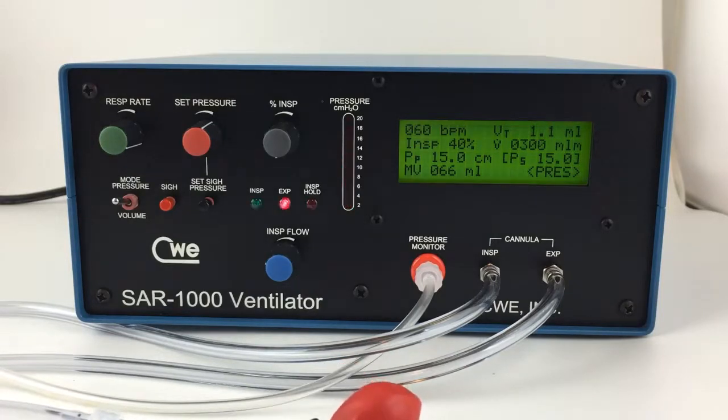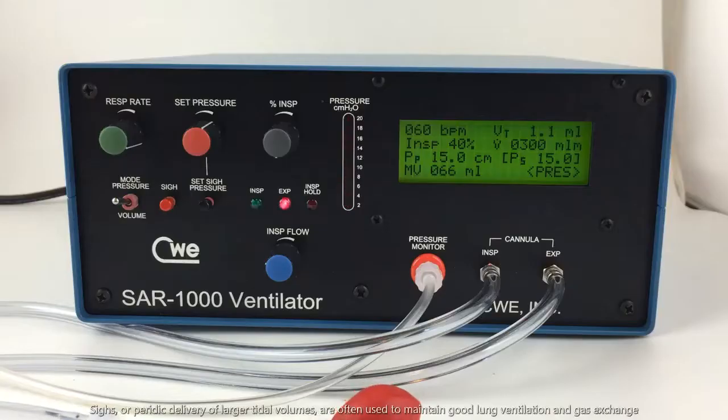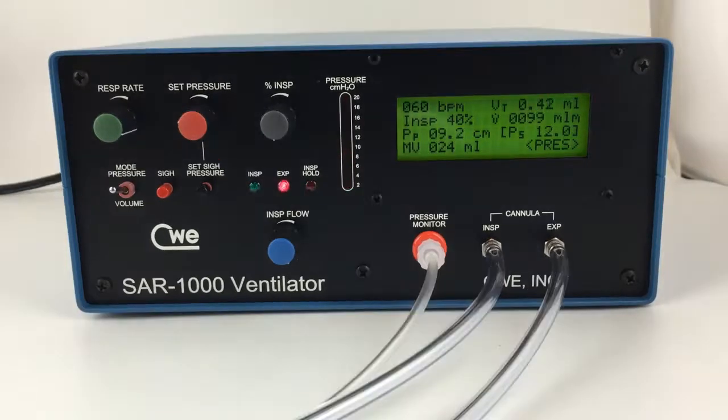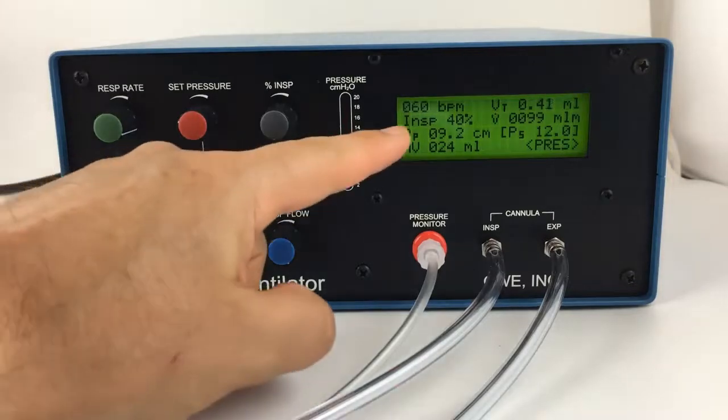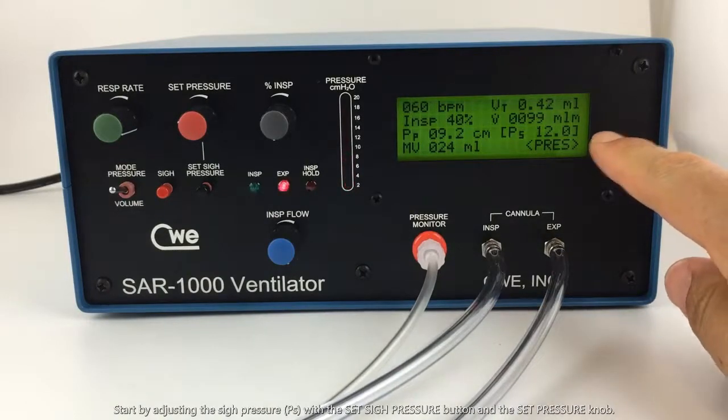Finally, let's go over the sigh feature. Sighs, or periodic delivery of a larger tidal volume, are often used to maintain good lung ventilation and gas exchange. The first thing to determine when using the sigh feature is the sigh pressure. Here we can see the pressure that we have set for inspiration. And on this side is the sigh pressure.